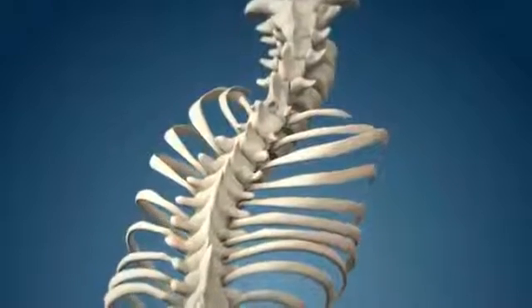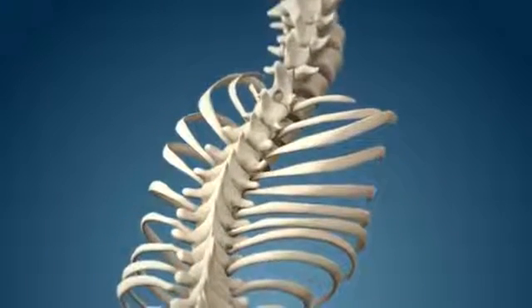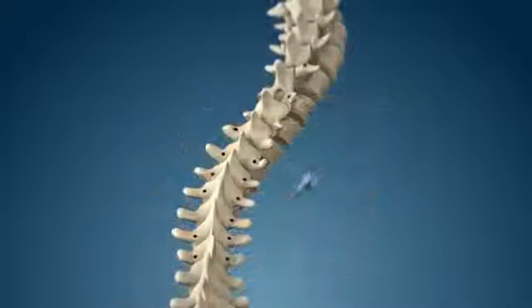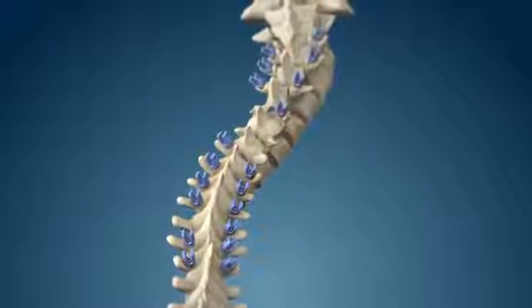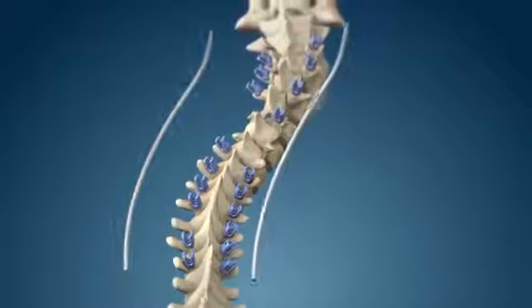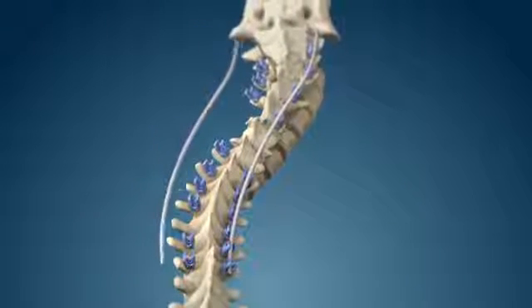While traditional three-dimensional correction techniques have required rod reduction to be followed by vertebral body derotation, the deroduction technique enables the surgeon to select the sequence of vertebral body derotation and rod reduction.